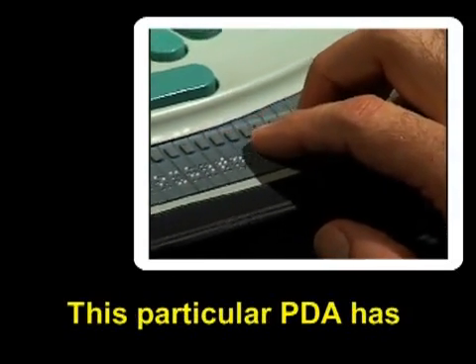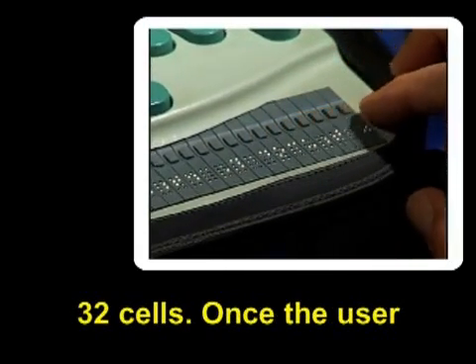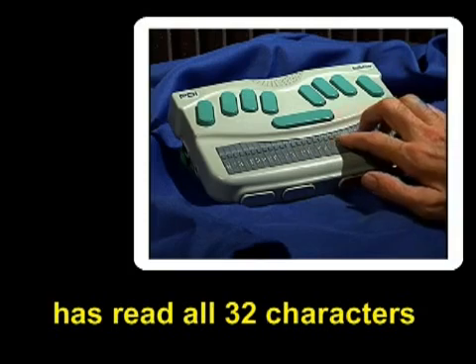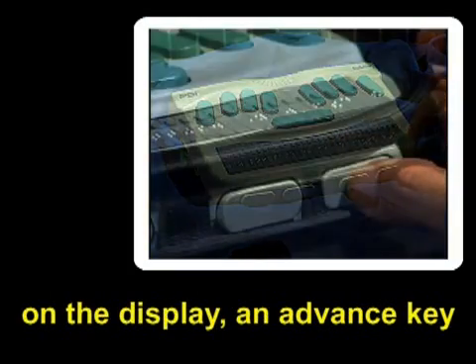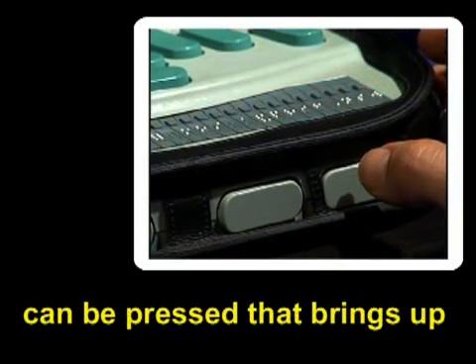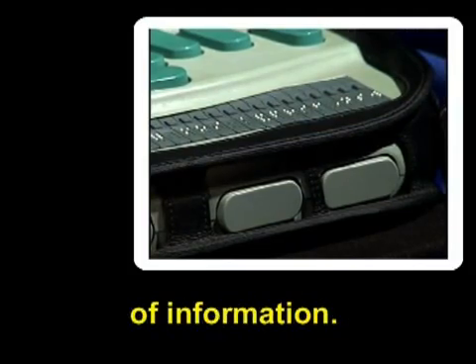This particular PDA has 32 cells. Once the user has read all 32 characters on the display, an advance key can be pressed that brings up the next 32 characters of information.